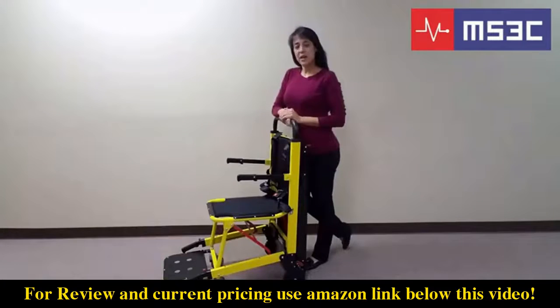We would like to introduce you to the MS3C-300 TSB, our battery operated evacuation stair chair. This versatile model is designed as an evacuation vehicle in case of a fire, power failure, or any other emergency. The 300 TSB can also be used in assisting individuals in ascending and descending flights of stairs. This video will showcase its features and demonstrate its basic operations. We strongly urge you to familiarize yourself with this unit and test it prior to using it with a passenger.